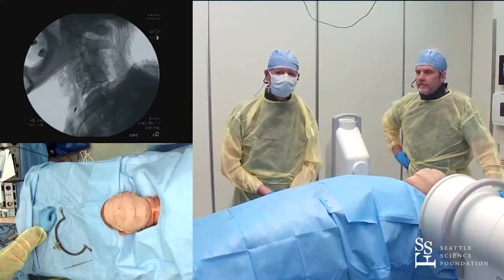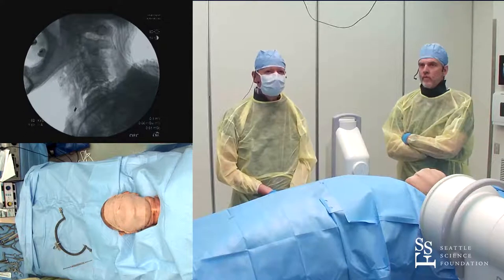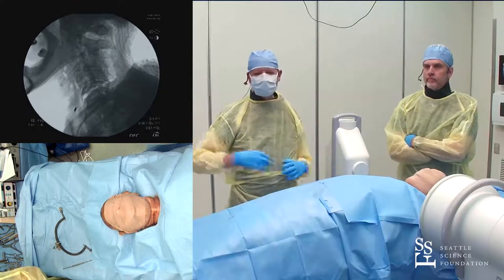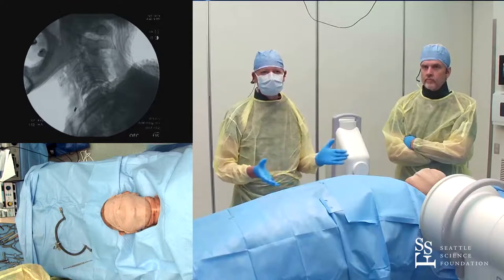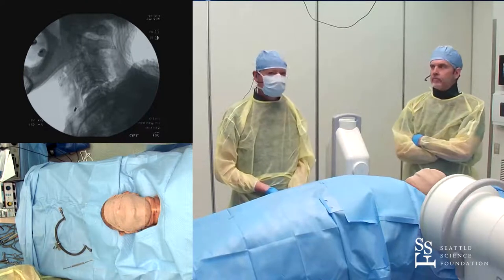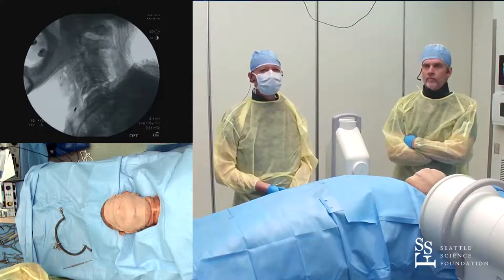I would not wait days. Muscle relaxation is important, but our approach is pretty rapid — put the tongs on, add weights. In the old days we'd get regular X-rays; by the time the film was processed and returned, we'd put the next weights on. The most I've ever applied is 140 pounds. These stainless steel tongs can tolerate that, though having enough weight is often the problem. The MRI-compatible tongs do not tolerate that much.